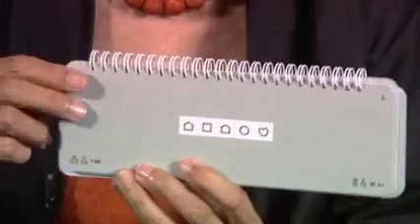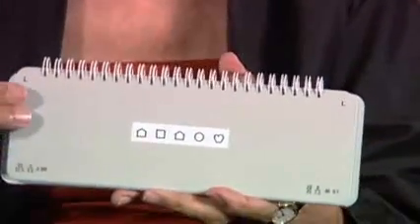This test goes to rather small sizes so that we can use it also in assessment, not only in screening, because we can get to the very small sizes that are close to the highest normal visual acuity values in young children. And again there are two of each size, so that we have the possibility also of using different tests for the left and the right eye.